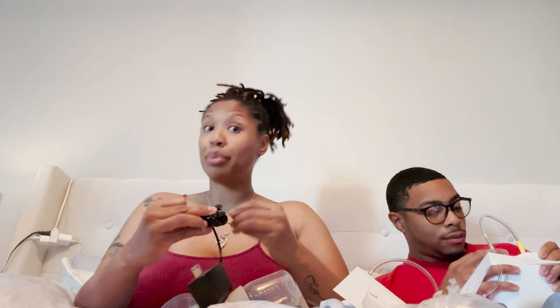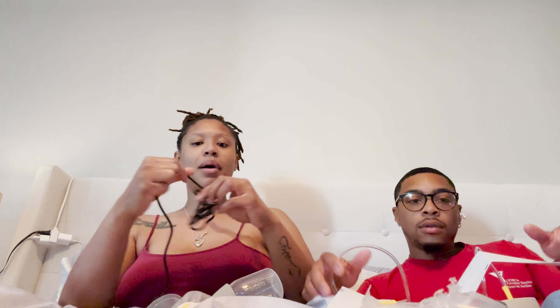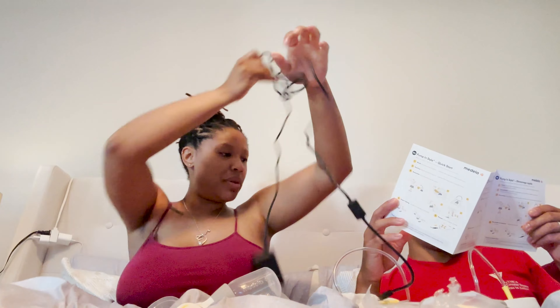This is the plug right here — you already gotta have a plug. I'm probably gonna charge it. No, it's electric — but it's got a battery pack in it though. This is the battery pack! Come on, I'm learning this without even having the directions. Come plug me in!